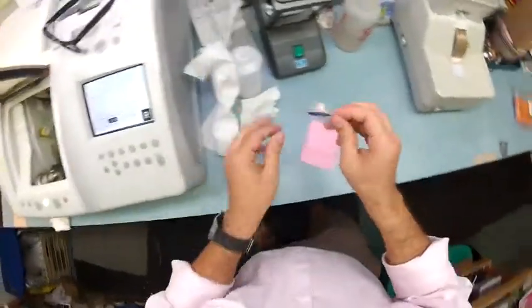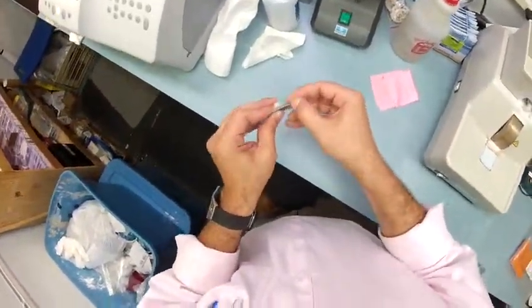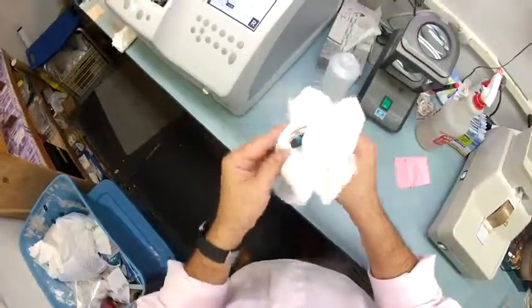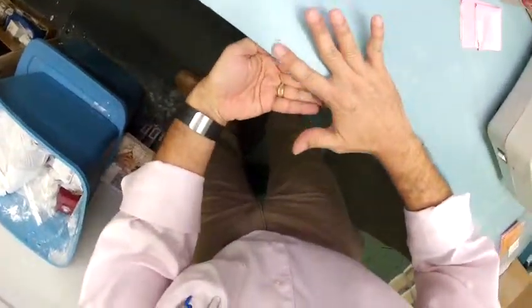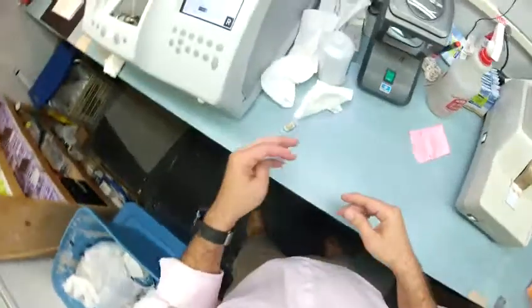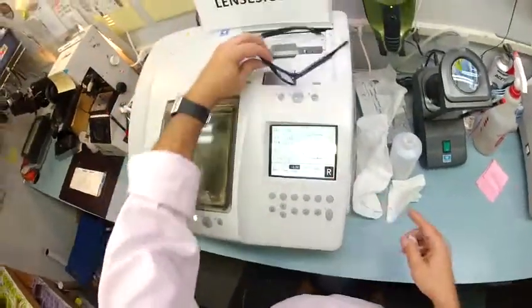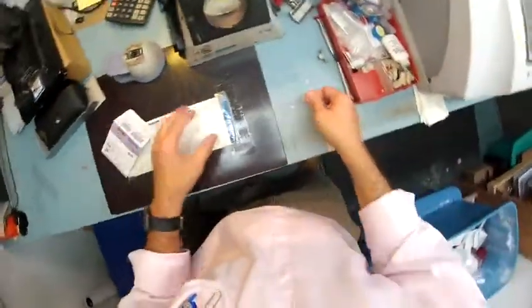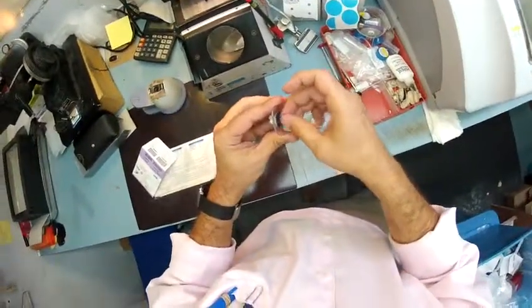Take this out, dry it off, back to the hand stone, back to the safety bevel. And because my wife hates it when I make a mess, just this one time in her honor I'm going to throw the optical debris in the trash can. But I want you to see why I wipe it on the floor — I'm going to collect it and walk to the trash can. See how far I have to go? That's why I throw it on the floor. Okay, so I blew it — I miscut your right lens. Time for a do-over — let's cut another lens.